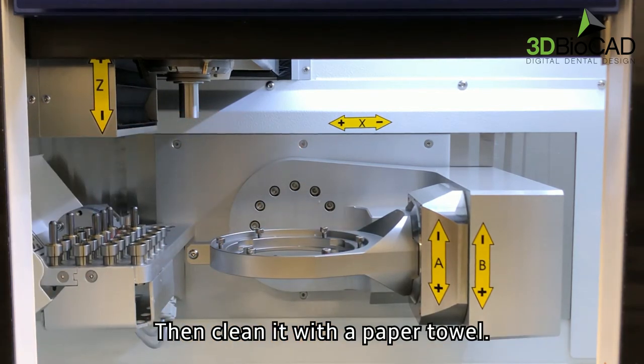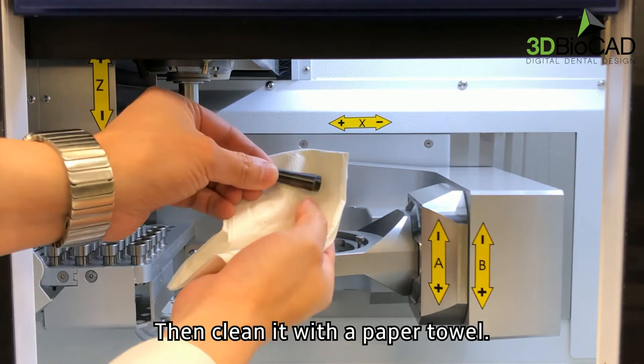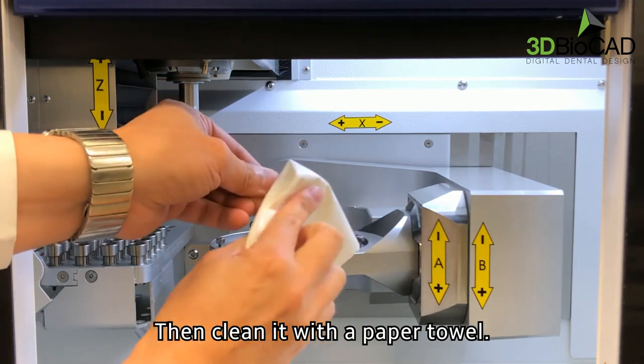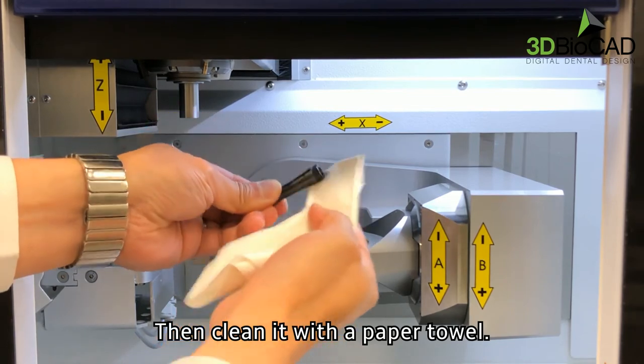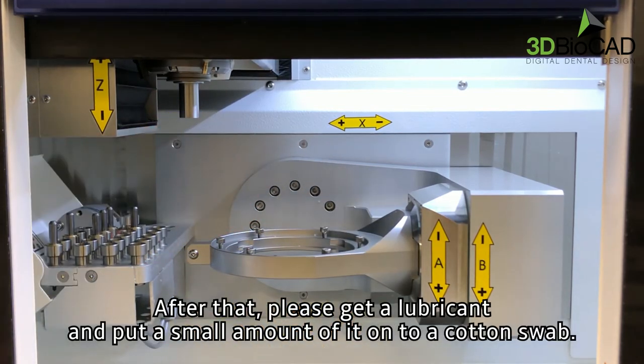You can clean the collet with a cotton swab as well. Then clean it with a paper towel.